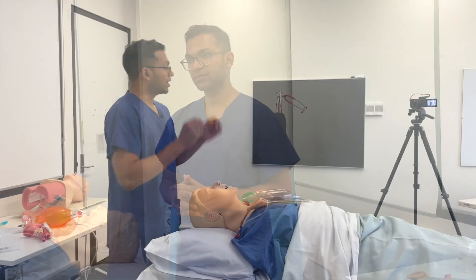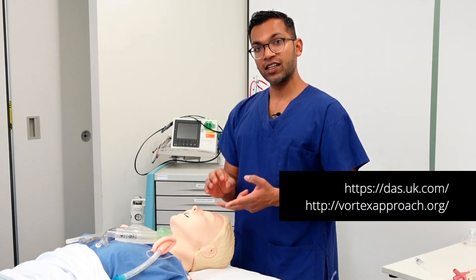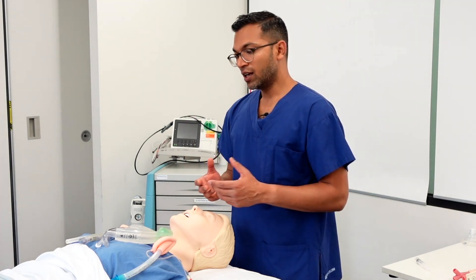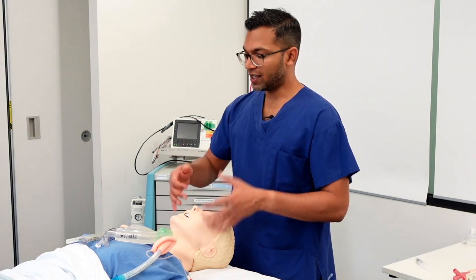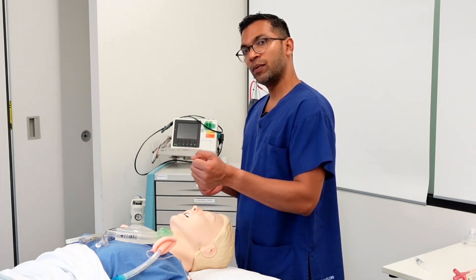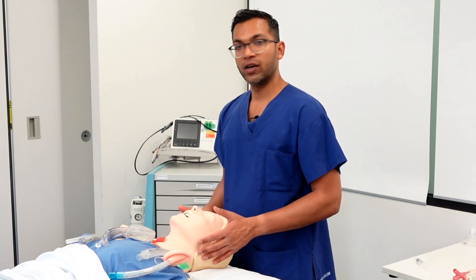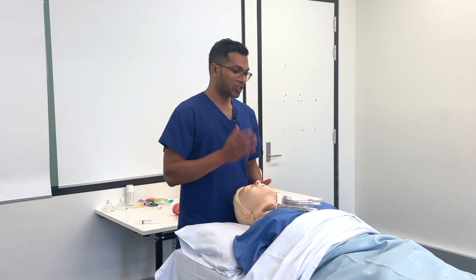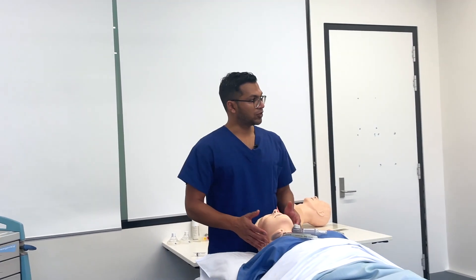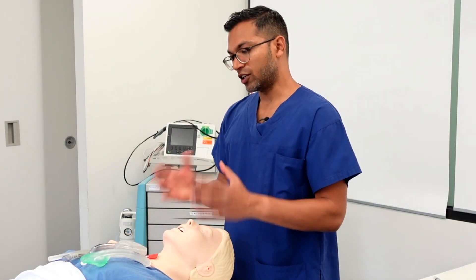The final context for using LMAs refers back to the Difficult Airway Society algorithm and the vortex approach. If I've got a patient under anesthetic with an unexpected difficult airway — I've tried bag mask ventilation, optimized with oropharyngeal/nasopharyngeal airway, two-handed jaw thrust — and I can't oxygenate, then I try laryngoscopy and get a grade four view without a video laryngoscope available, I would put in one of these LMAs as my rescue device to maintain oxygenation while planning for another operator with a video laryngoscope or front-of-neck access.